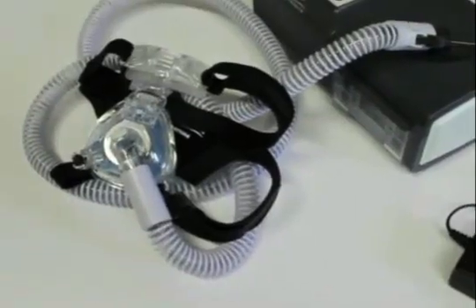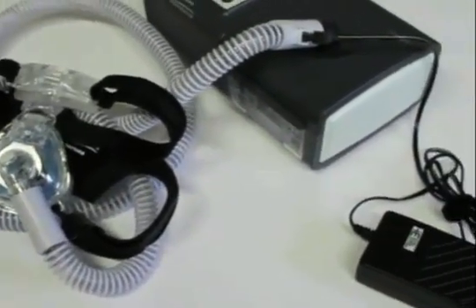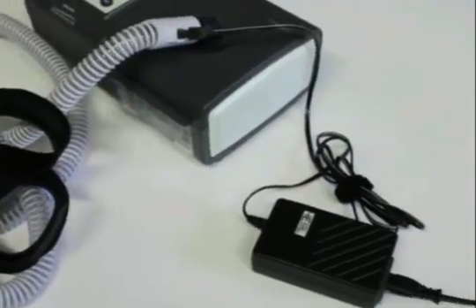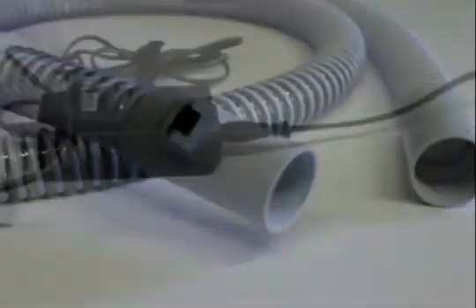Even better, you can fit Hibernite to any humidifier that currently uses standard tubing. Hibernite has its own power supply and is totally independent of the airflow generator or humidifier.